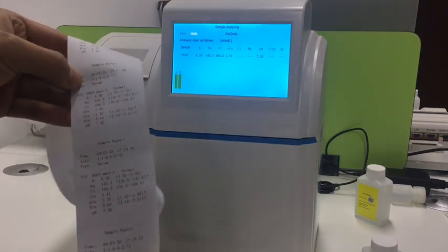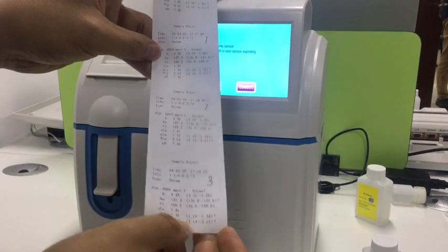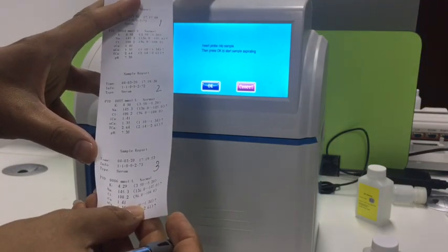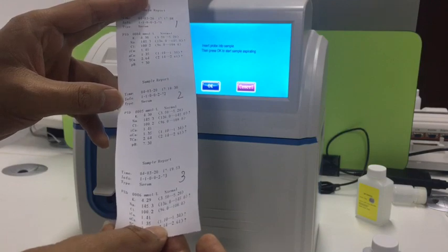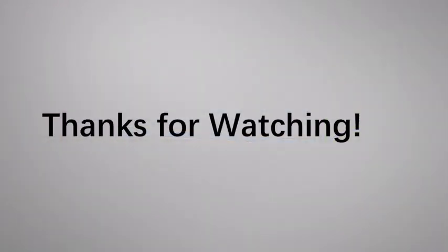After the correction runs are complete, we use a pencil to note down the numbers. These three measurements are from the same solution. We can note them down and use a calculator to calculate the mean value, SD, and CV to check the stability of the machine.